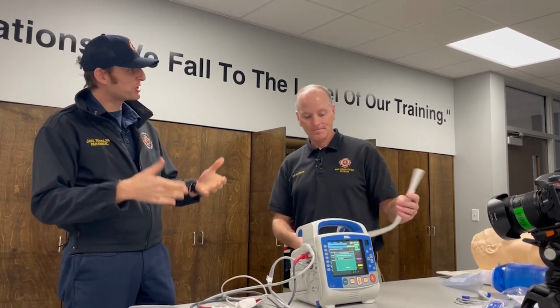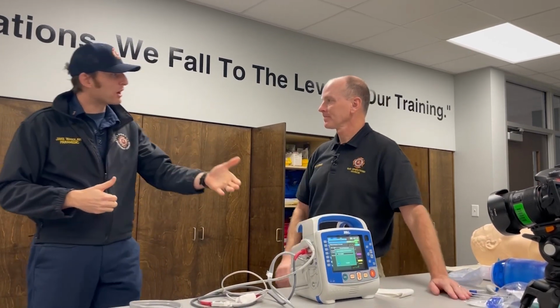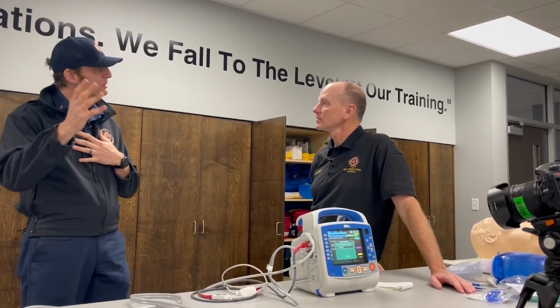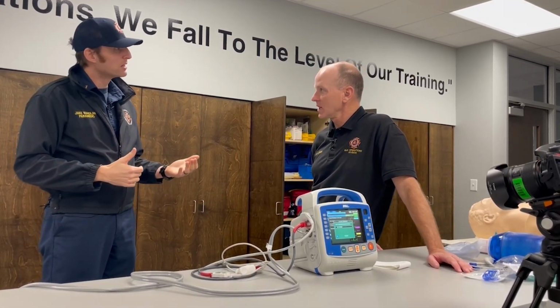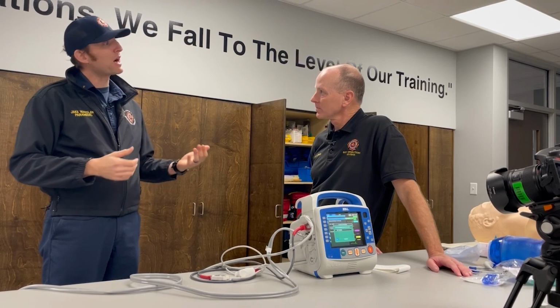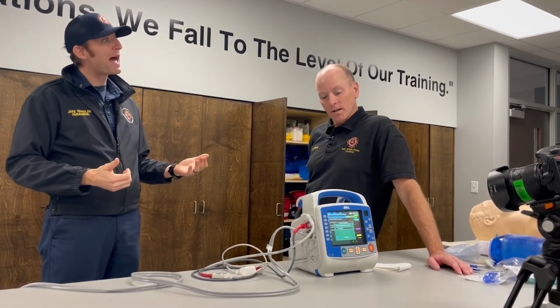So let's just say that specific scenario, right? Okay. So technology failed, we failed, human error. We made that phone call. They want that transmission eventually, right? Yes, sir. So let's say this monitor's turned off and we had to go find an old 12 lead. So how do we do that?